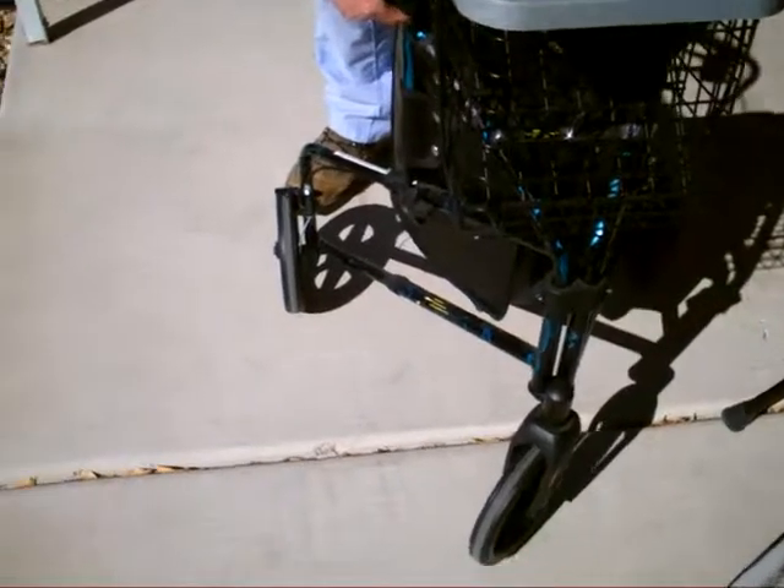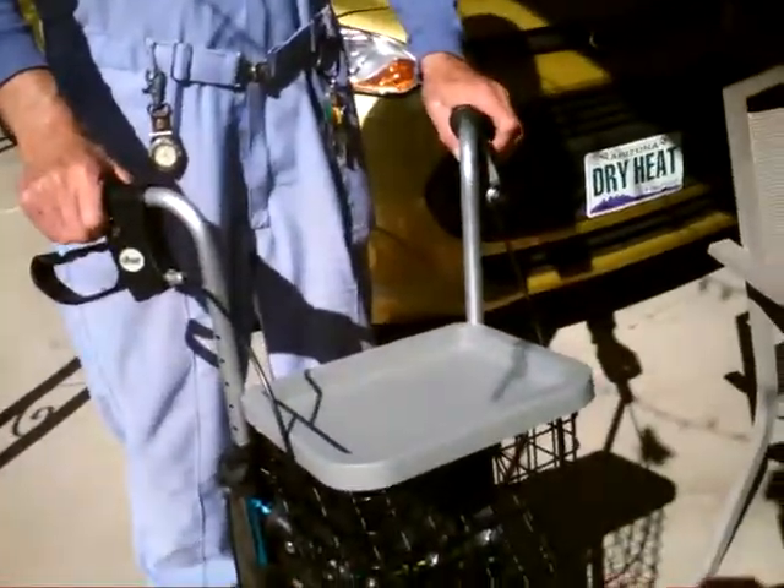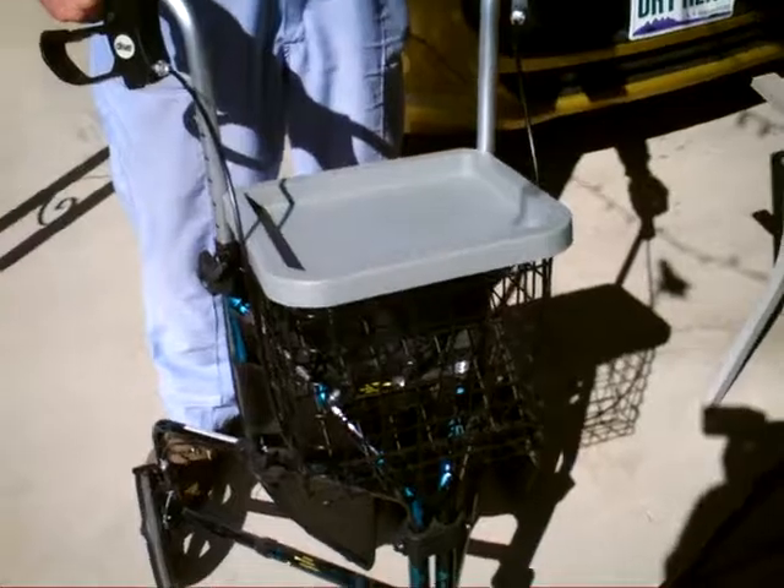Then this, you unscrew and put it in whatever hole you want. I don't know if you're about as tall as I am — about the same, I guess.